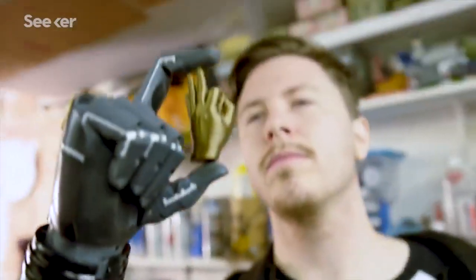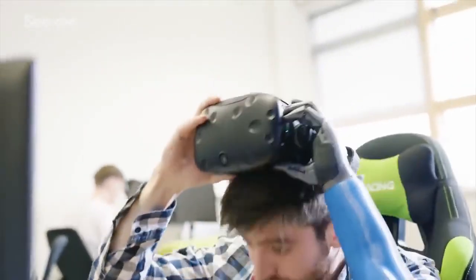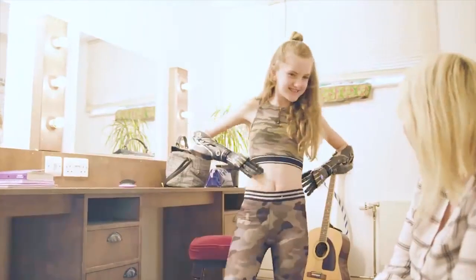We much prefer the kind of prosthesis we're making, which doesn't pretend to look like a human limb — it says you're unique, you're different, and that's brilliant; you should celebrate that. The same way I wouldn't wear skin-colored glasses frames that try to look like eyes — it's totally ridiculous to even consider that.